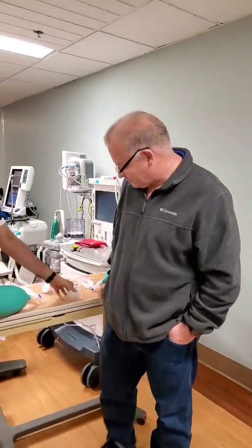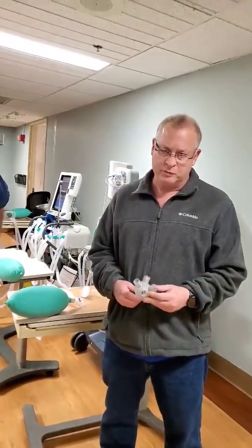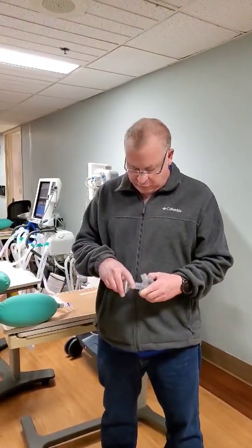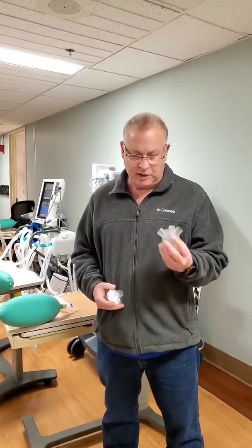I want to introduce you to Bob. Tell me what you've been up to. My name is Robert Connelly, I'm the owner of Connect and Catch Solutions. Less than four days ago, I got contacted by email if I could help out with coming up with a method of applying four hoses from one ventilator to four people. The first hose I got was from the anesthesiologist and we did our first trials yesterday. I came out with mixed views — we had problems with the ventilators interfering. So I came back, I redesigned it yesterday morning, sent the files to Kevin Dyer at Interprobe Models, and he 3D printed this CAD model overnight and supplied it this morning.